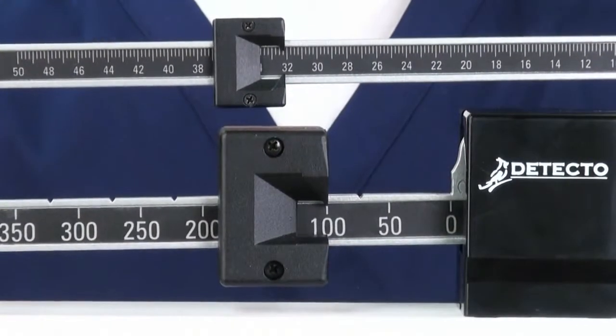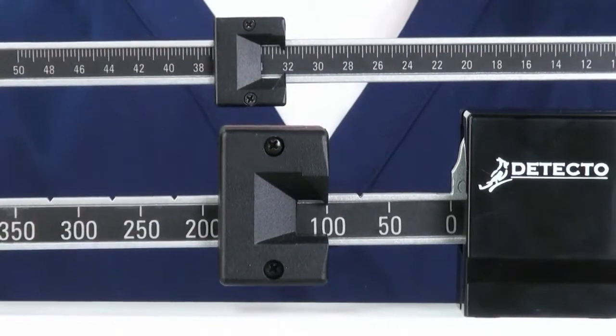Pounds, kilograms, or a combination of both are all available on the easy-to-read beams.